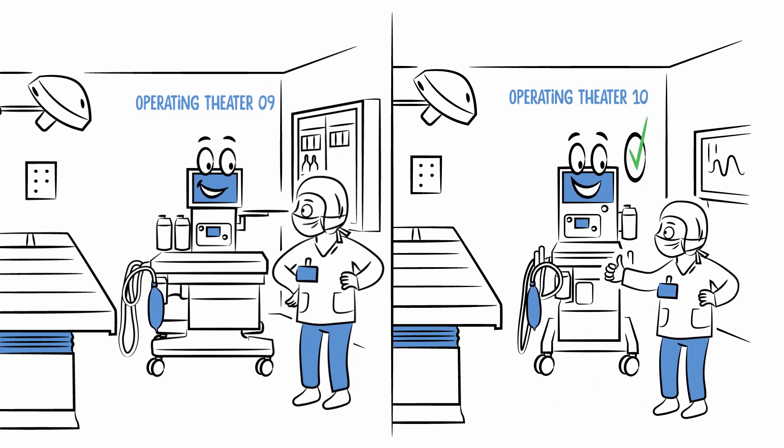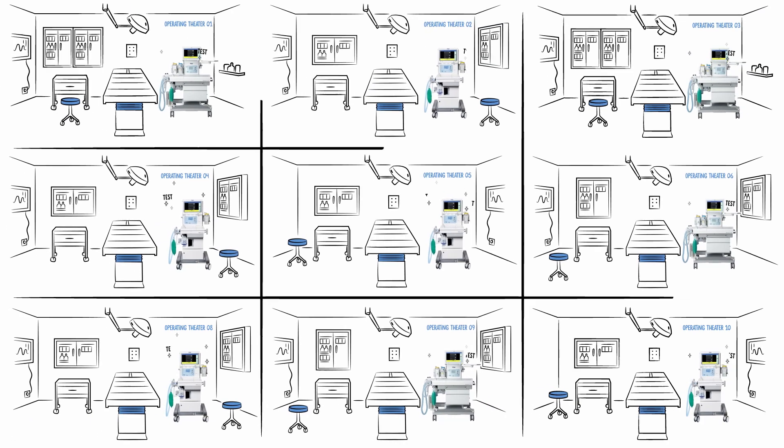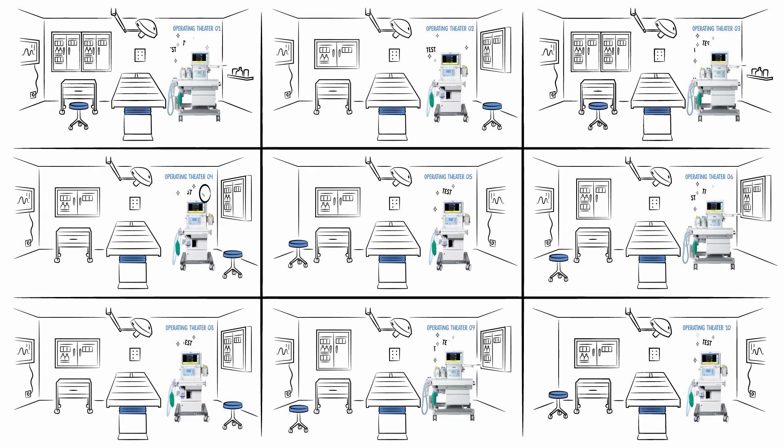With the Auto-On and our Self-Test Tracker, you can save valuable time. The anaesthesia machines test themselves automatically, report their status in the dashboard and are ready for use when you need them.